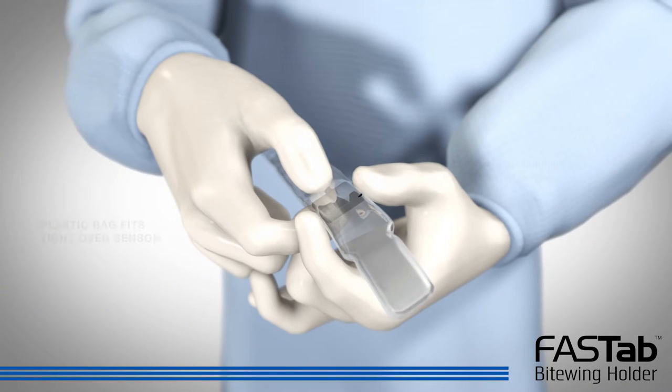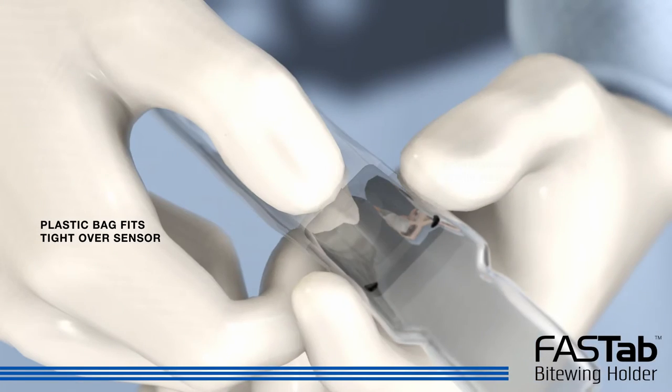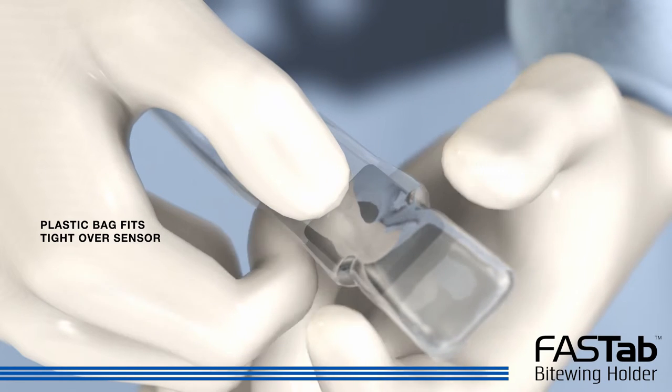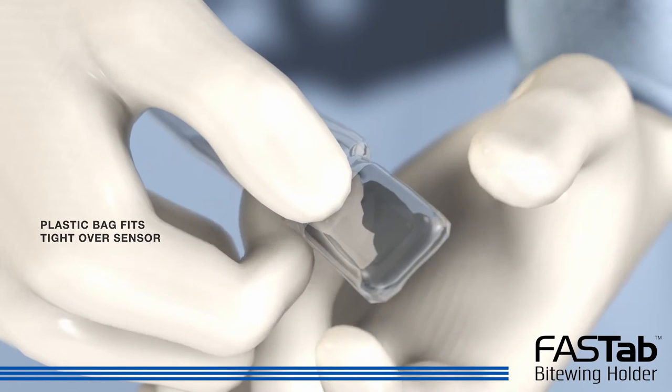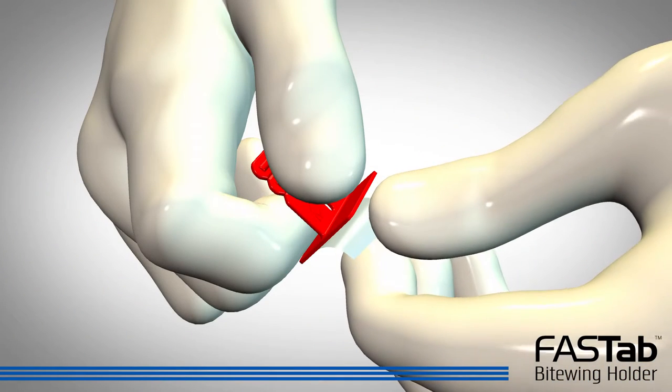When the sensor reaches the tight part of the cover, hold the sensor at the bottom with one hand and with the other hand move the sides of the cover down over the sensor. The RIN-tight sensor cover provides a secure fit preventing movement during the procedure.